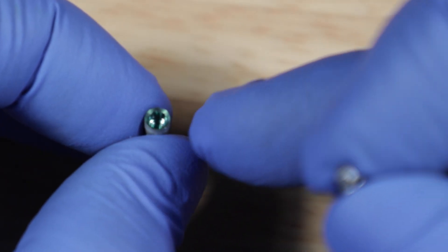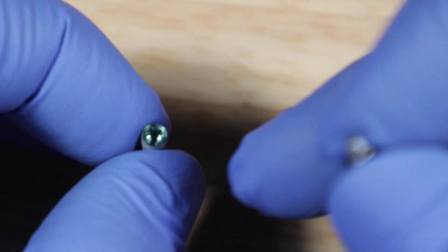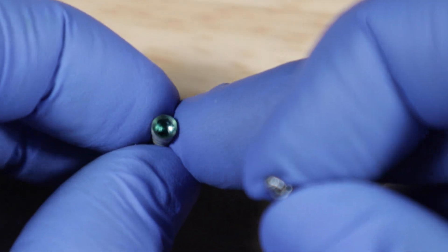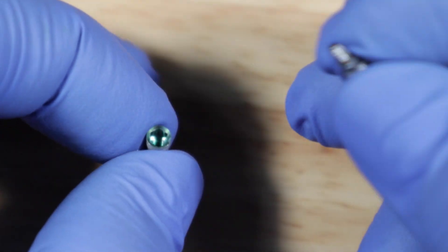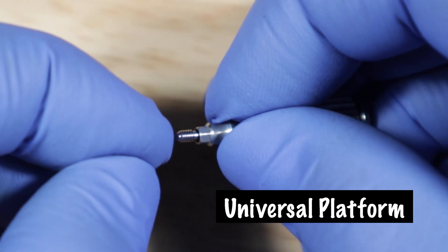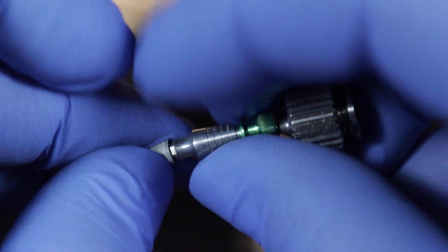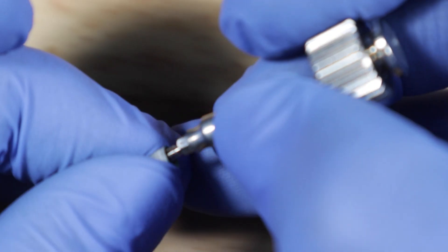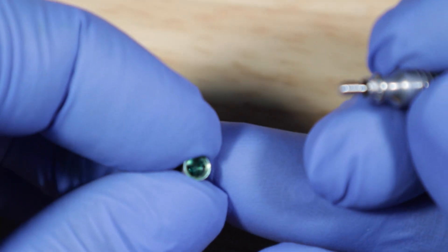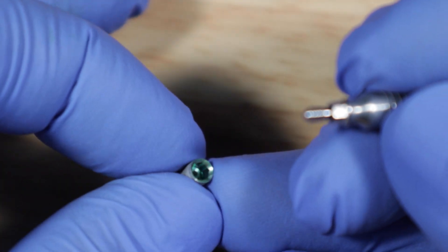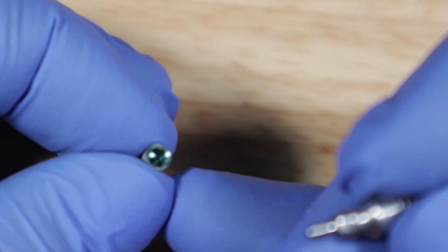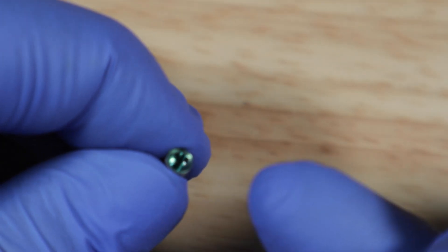Now the platform of this implant is internal hex. That means it's fully compatible with the Zimmer TSV platform. It's the most universal implant platform. And basically this part of the abutment that goes onto it is just a little hex and it clicks onto that right there. And because it's internal hex that means that pretty much every single lab in existence will be able to restore this, because every single lab has experience with restoring Zimmer internal hex.